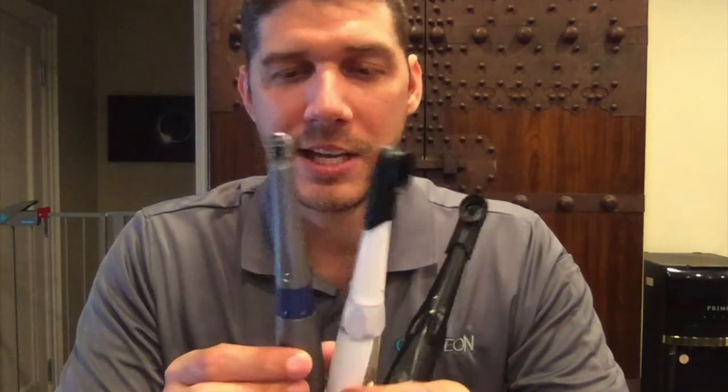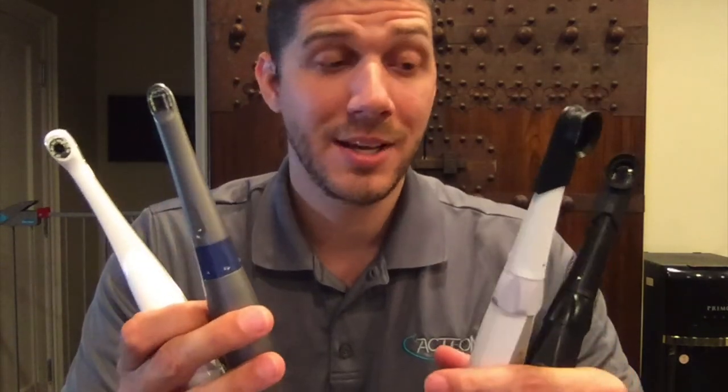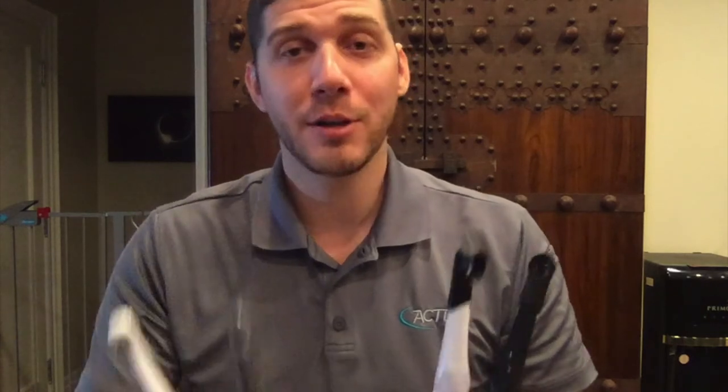That is the lineup of our SOPRO cameras. The SOPRO Care and SOPRO Life cameras both come with removable hoods used to block out ambient light during diagnostic modes. The SOPRO Care, SOPRO Life, and SOPRO 717 cameras all use the same barrier sheets. The 617 camera has a full-length barrier. These cameras have a four-year warranty, are exceptionally well-priced, and extremely high quality. I strongly urge you to take a look at these and see how they fit your practice's needs. Thanks.